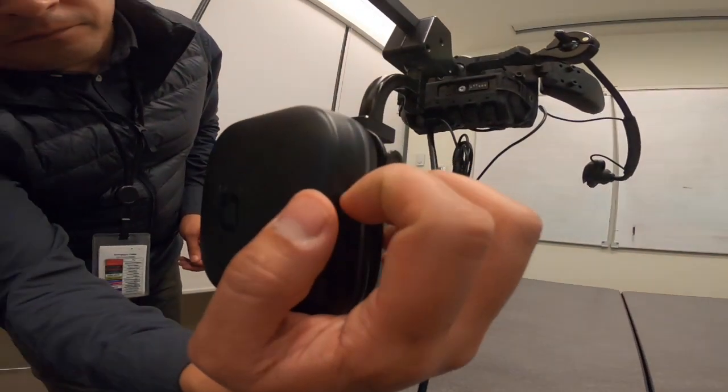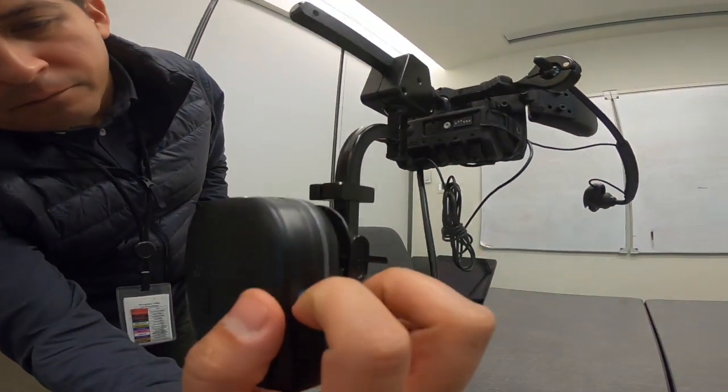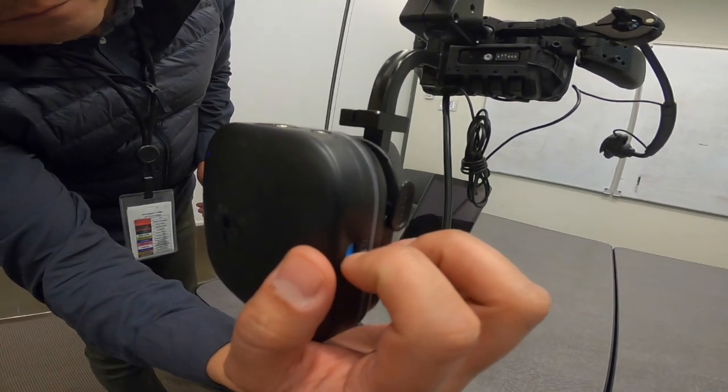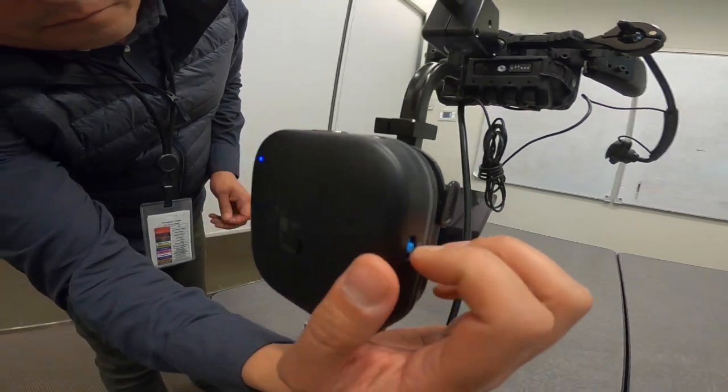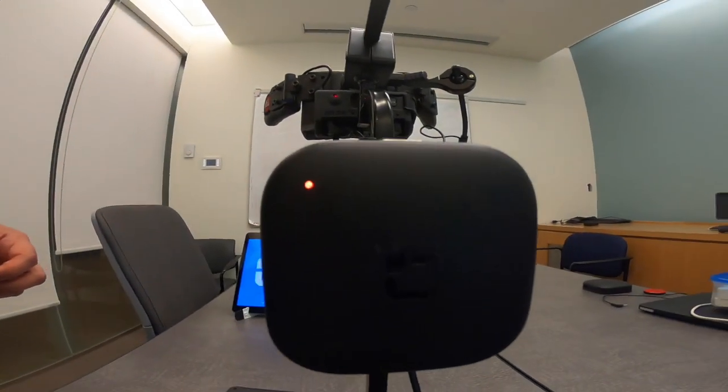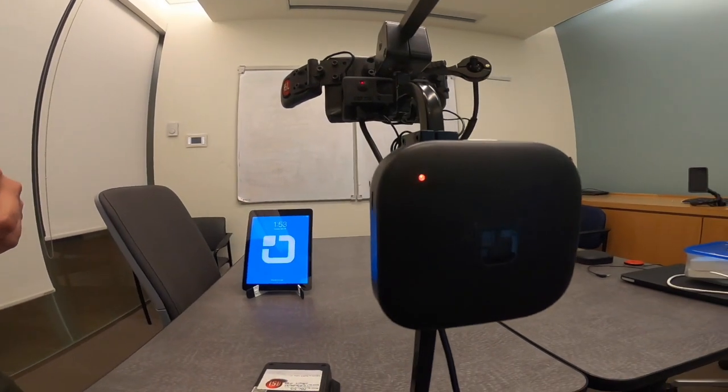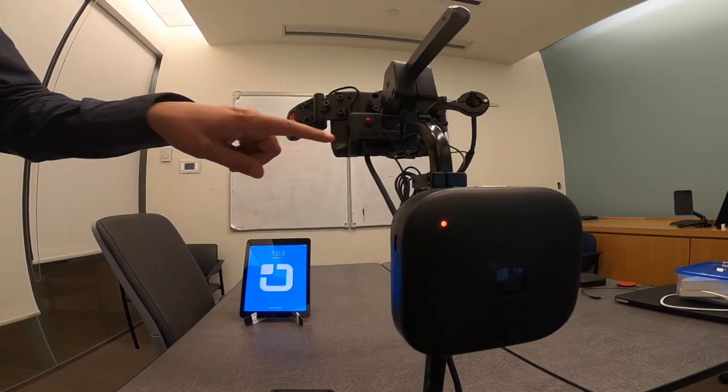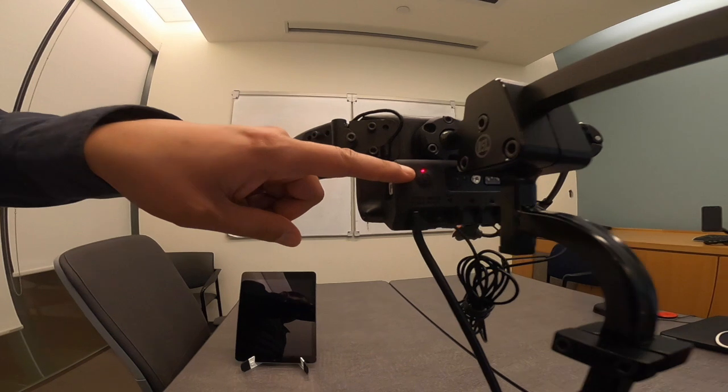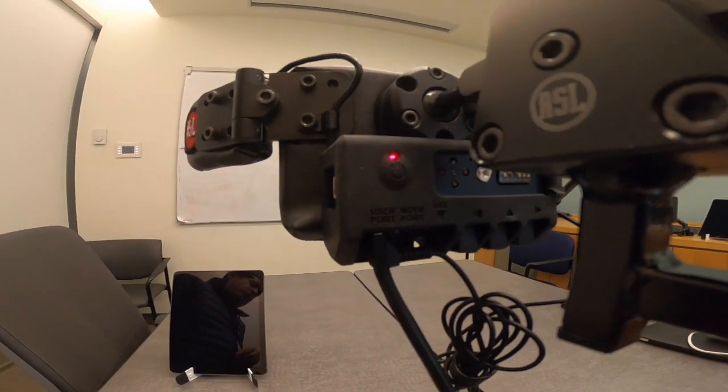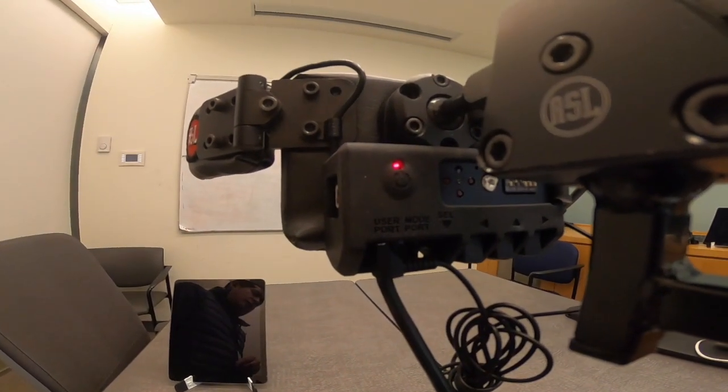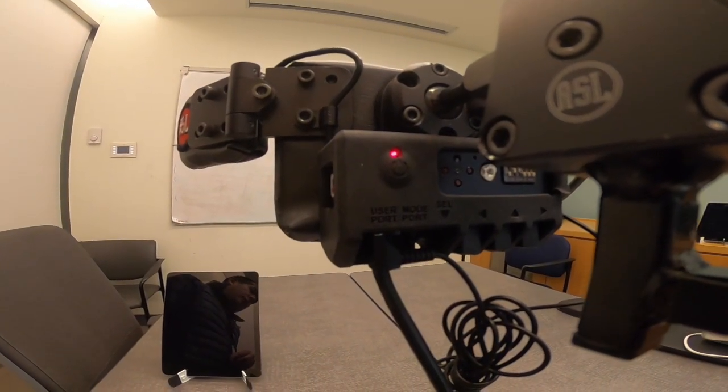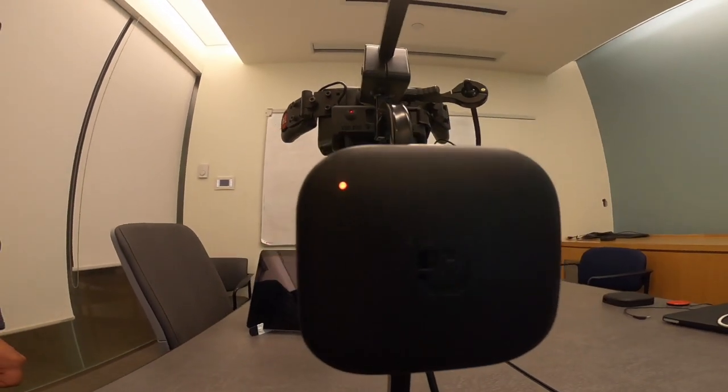Now we will put the Tecla in pairing mode. We do this by pressing and holding down. The light will go orange, but since the device was in pairing, now the Atom is a solid red because it is paired with Tecla. Please note that the pairing mode on Tecla takes around 30 seconds. It will make a noise and turn blue once it has finished connecting.